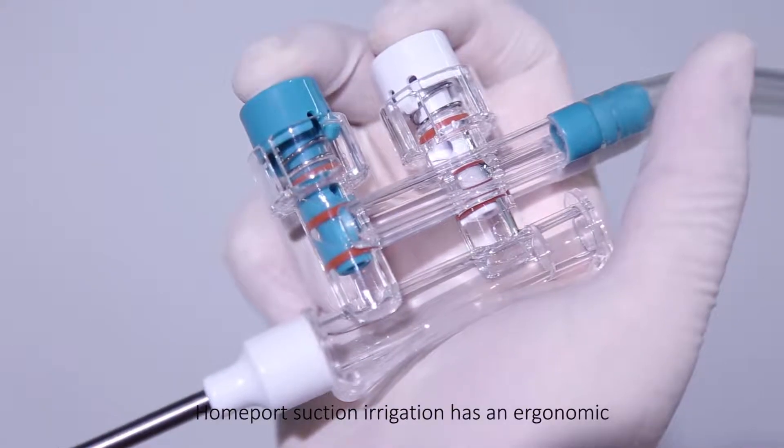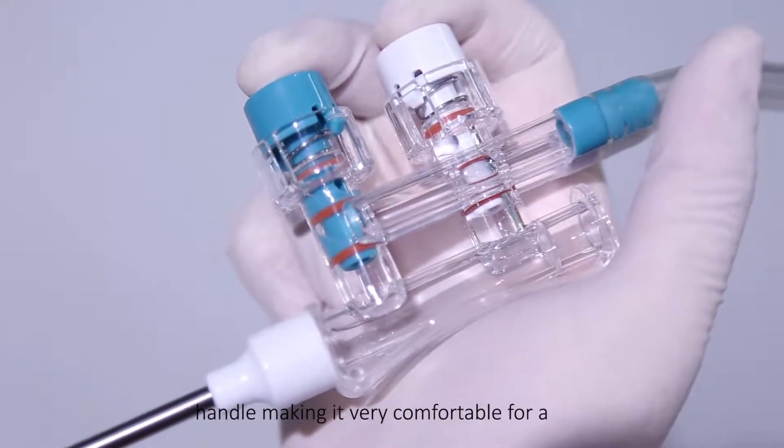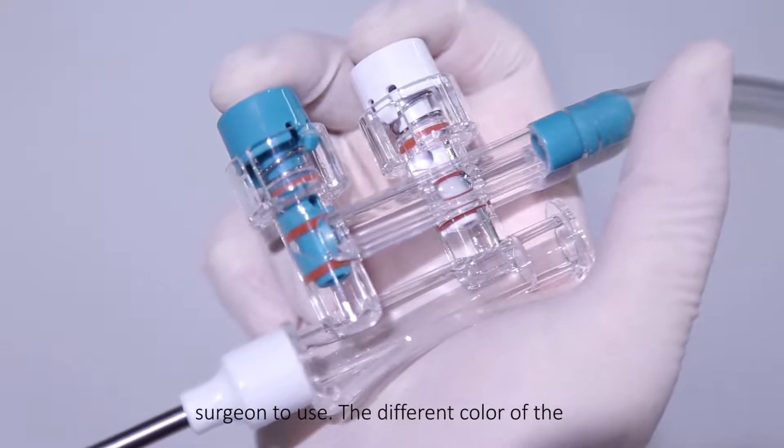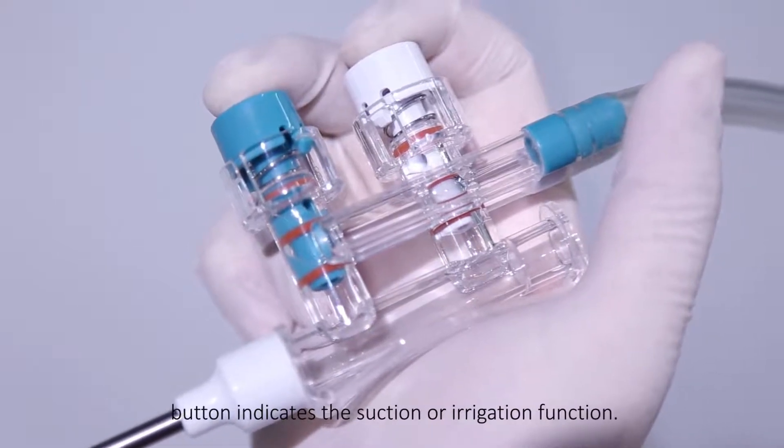Homeport Suction Irrigation has an ergonomic handle, making it very comfortable for a surgeon to use. The different color of the button indicates the suction or irrigation function.